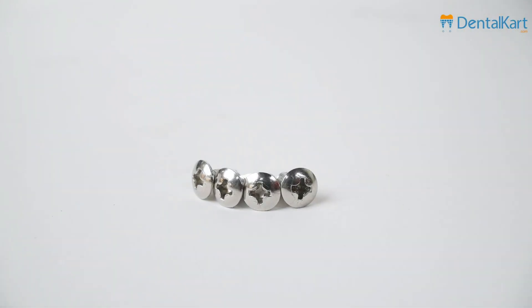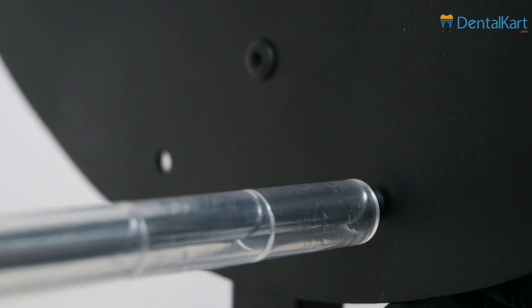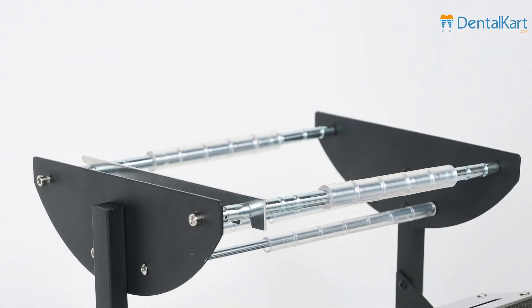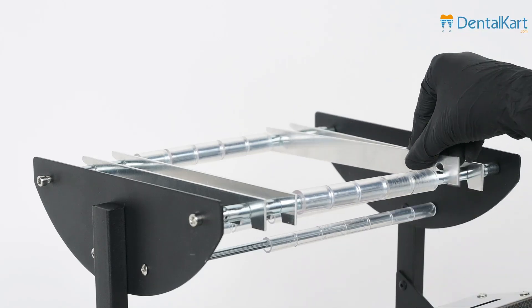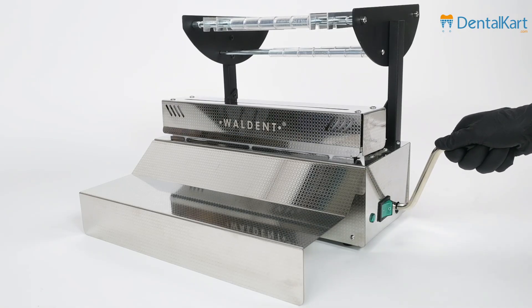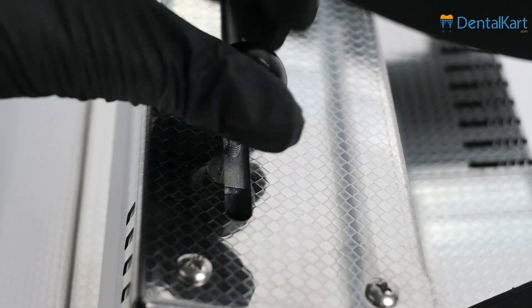Using the small screws, attach it into the rack — the smaller holes of the rack should be used here. Now attach the baffles into the frame as required to place the number of reels. Then attach the handle to the mainframe. Now attach the cutting screw into the mainframe simply by screwing it into the hole.